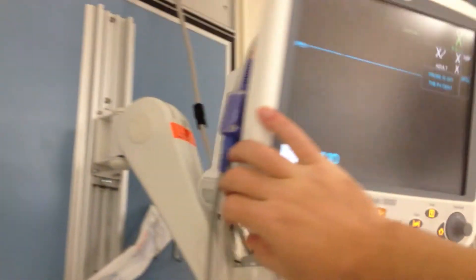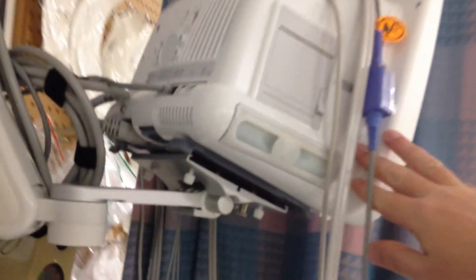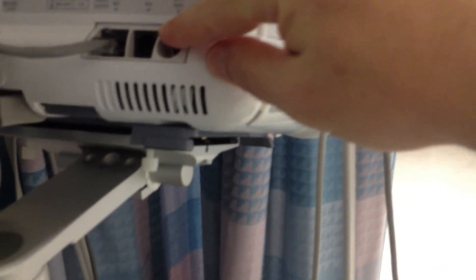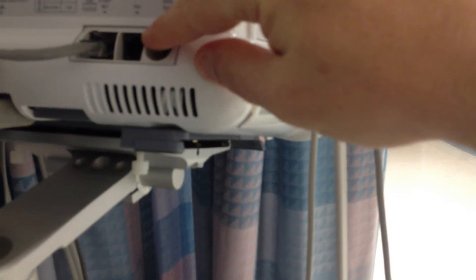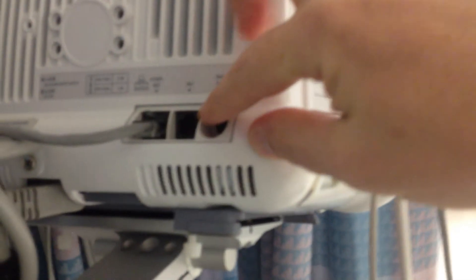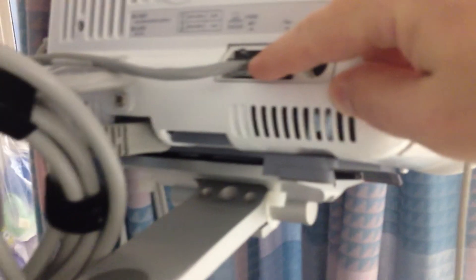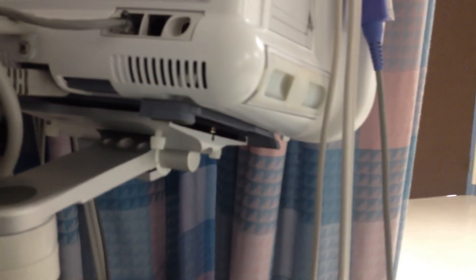Let's look in the back here. When we go ahead and connect into the RS-232, we'll connect into the AUX port right here — not the Ethernet, which will go to central vitals.